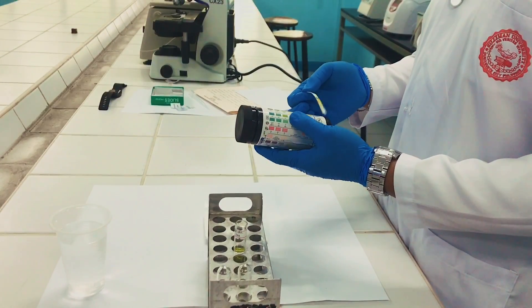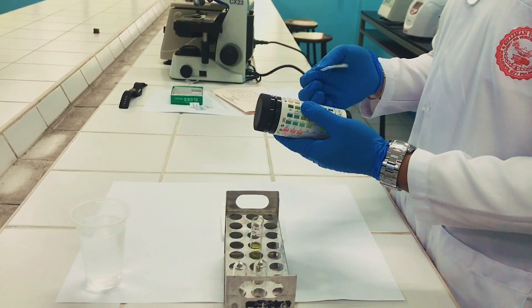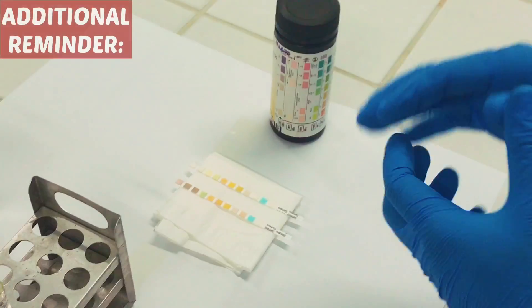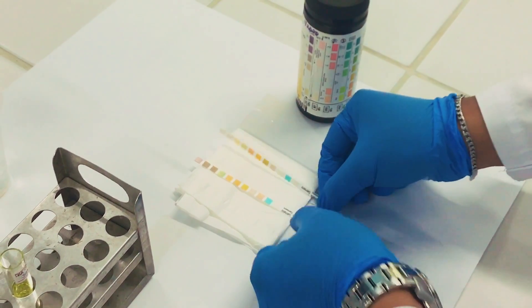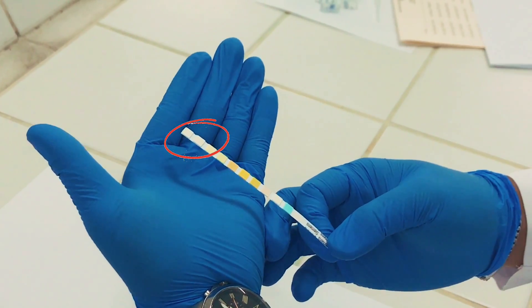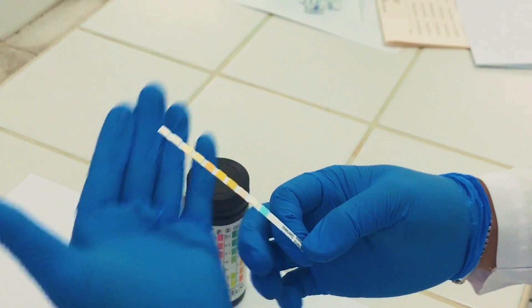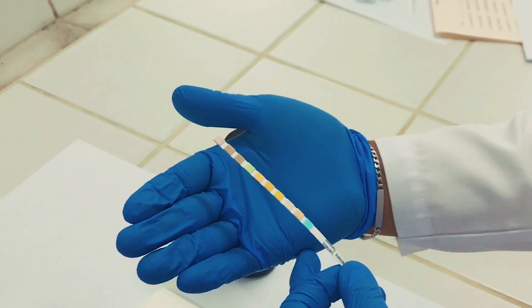Once you are done comparing your reagent strip to the chart, you should dispose the reagent strip in a bottle with disinfectant. Additional reminder on how to know if our reagent strip is still okay to be used: we should always look at the last two parameters, and they should have a white color or any shade of white. Any color change in the last two parameters means that our reagent strip has already expired and is not okay to be used.